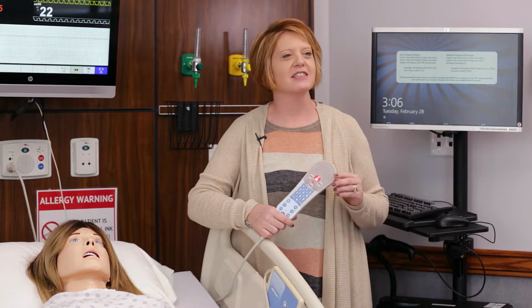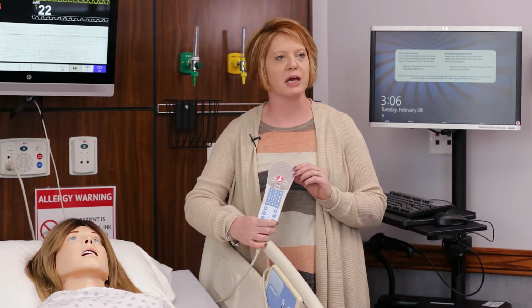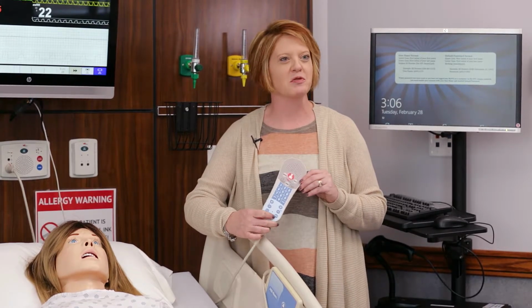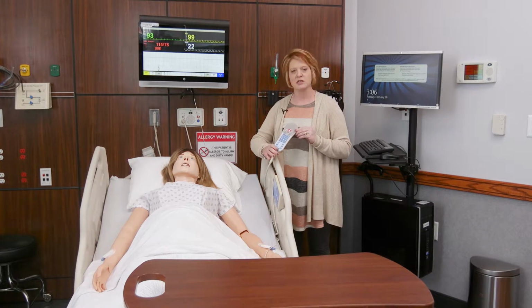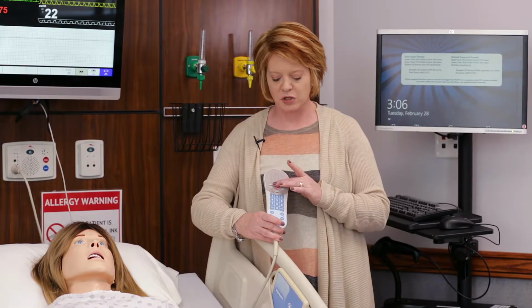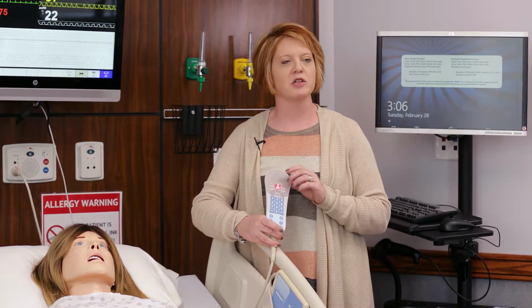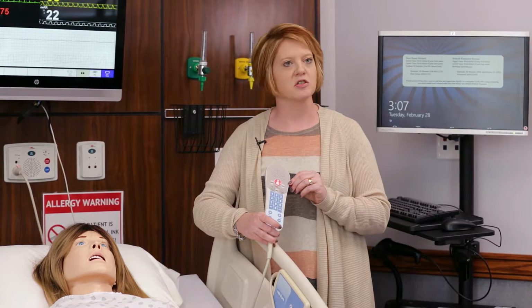One of the patient call light systems that you have found in your patient rooms looks like this, that is attached to the patient's bed. You always want to make sure it's in place before you leave your room. Even though the patient can't push it, you can actually use it to get help from a staff member or somebody else. This button right here, you can push to get help. It will actually ring into our control room and somebody will come to assist you.